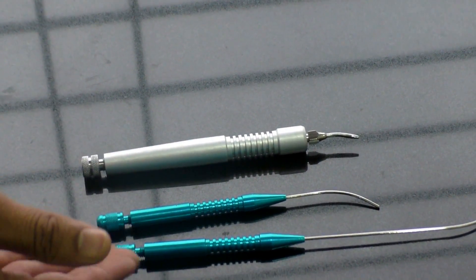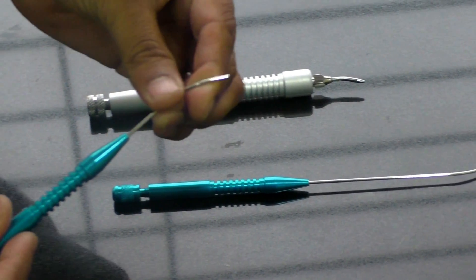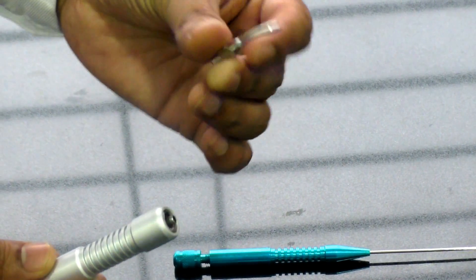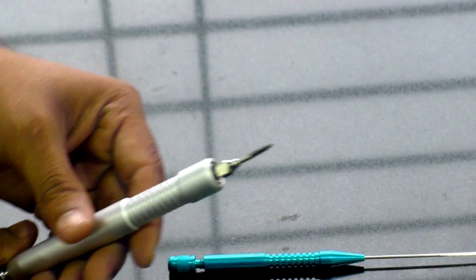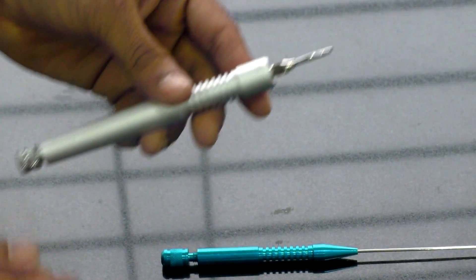So there are various types of handpieces. These are prefixed with the fiber tips, however these are ones which can be altered. You can get a straight, angulated, or you can have any angulation that you look for. Ideally it is around 60 degrees bend which an ideal laser fiber can go through.